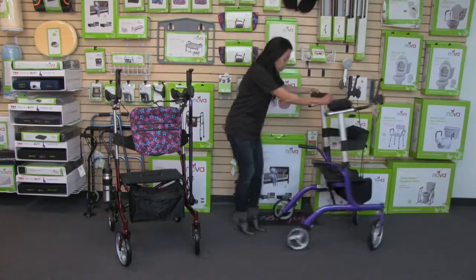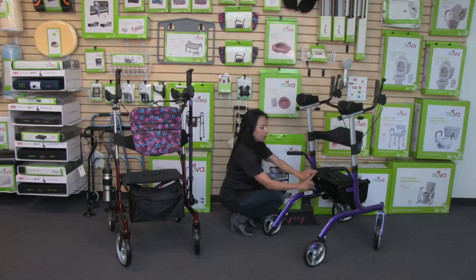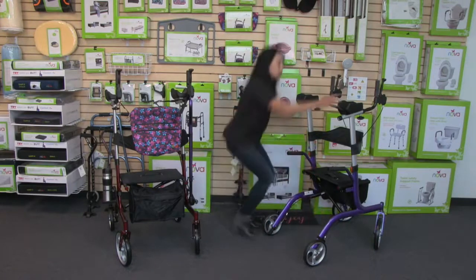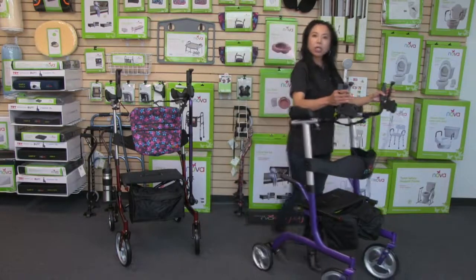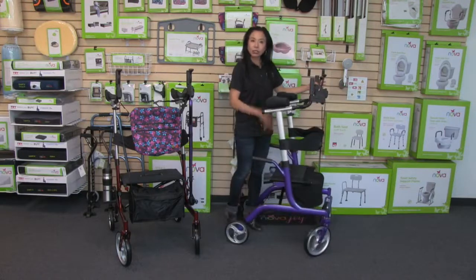The frame is also designed to have walking clearance. There are about 32 inches from the seat to where the step is, giving the user lots of clearance for a natural walking gait — looking forward in an upright position without running into the seat.